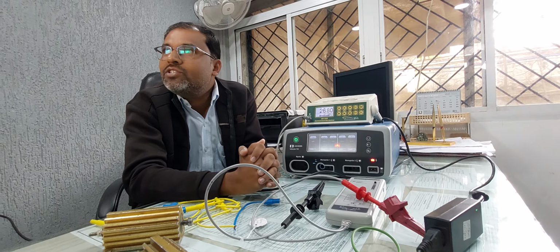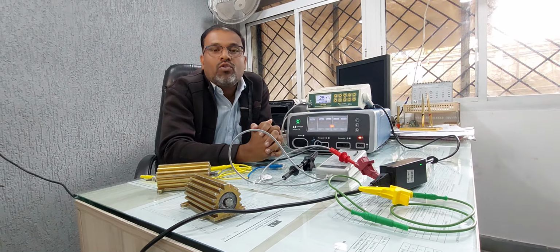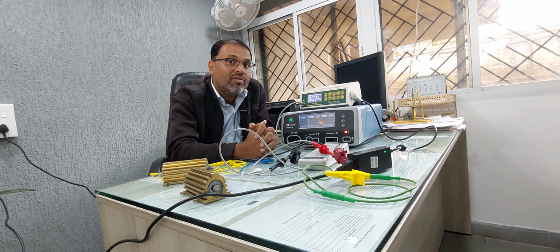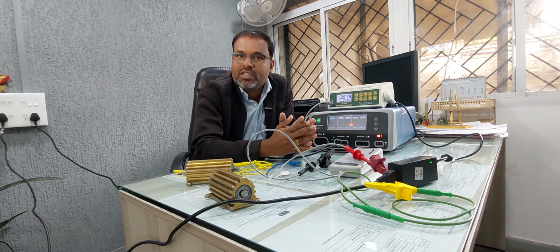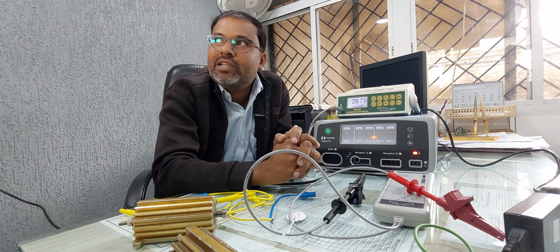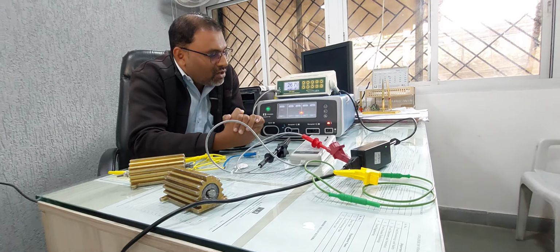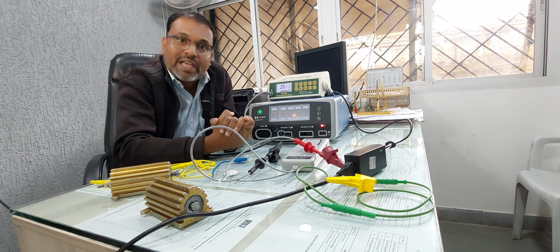So first of all, what is calibration? What is the use of calibration? See, whenever we are using any type of equipment, there are two very important parameters. One is accuracy and the second one is error. Accuracy is the closeness between the measured value and the reference value. Suppose there is some standard value, and how close these two values are, that is called accuracy. And error is the difference between the measured value and the standard value. So calibration is required to minimize the error and to increase its accuracy.